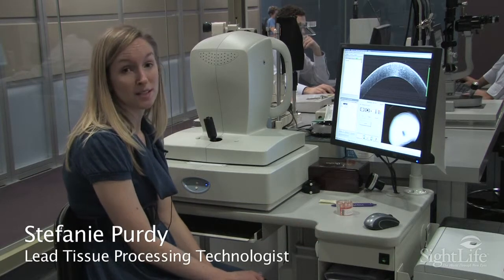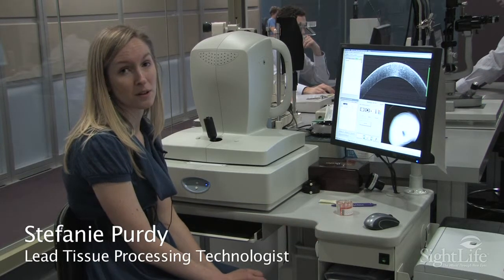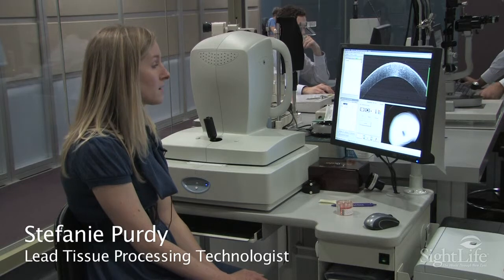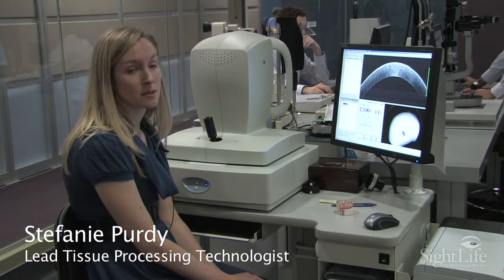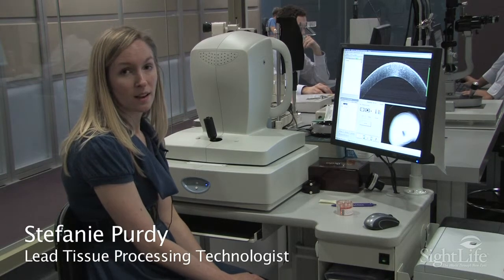This is the OCT machine, the Optical Coherence Tomography, and we use it to measure corneal thicknesses.